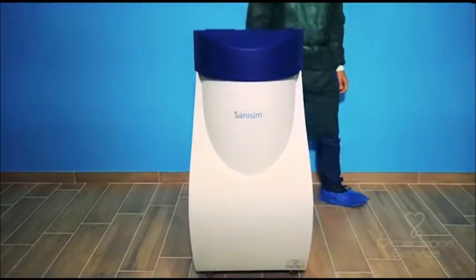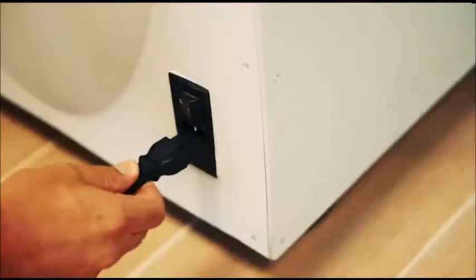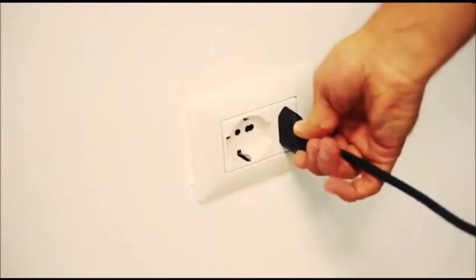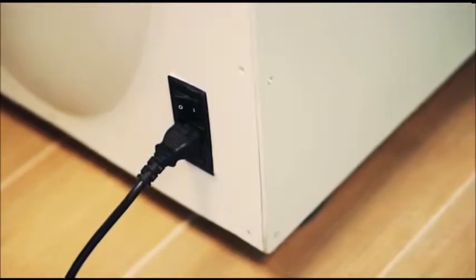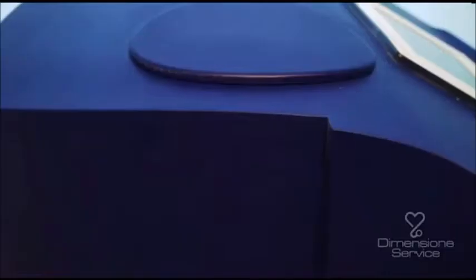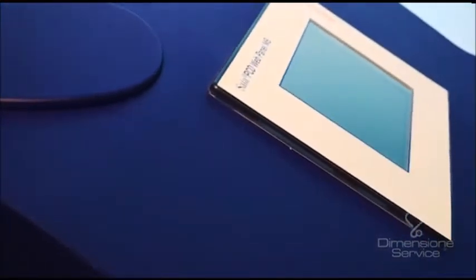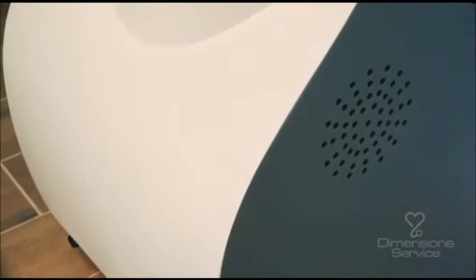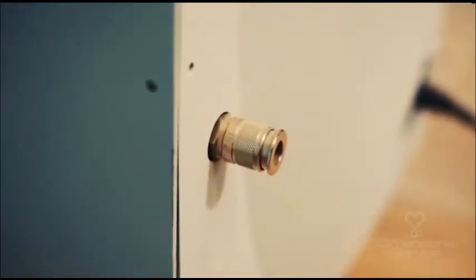distribute the nebulized particles. Once the device is positioned, it will be necessary to power it by connecting it to main power 230 volts through 50 Hz and turning it on using the on-off button located at the bottom. At this point, once started, the touchscreen lights up from which it is possible to control the device and access all the functions. Normally, it works with compressed air generated by an internal compressor. This is the reason for the noise generated at startup, but it is possible to connect external compressed air through the socket connection located at the rear.